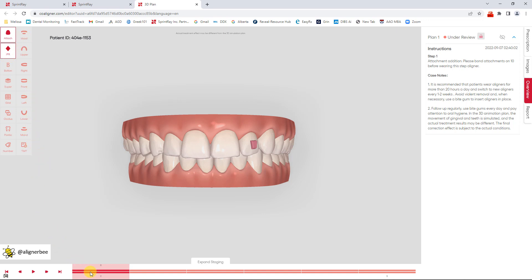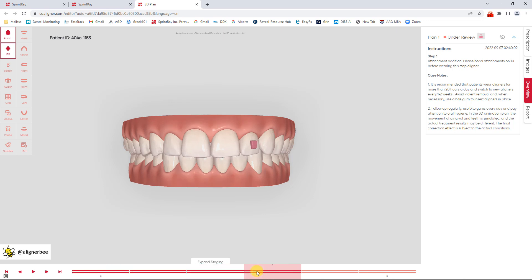Along the bottom of the screen I have the toolbar starting at the initial step where I would create any of my attachment templates. As you can see when I click on the different settings on the toolbar it will jump to that step automatically to allow you to see that view.